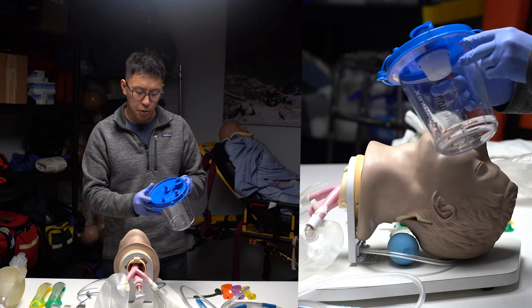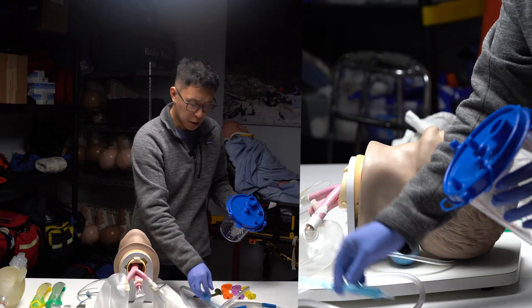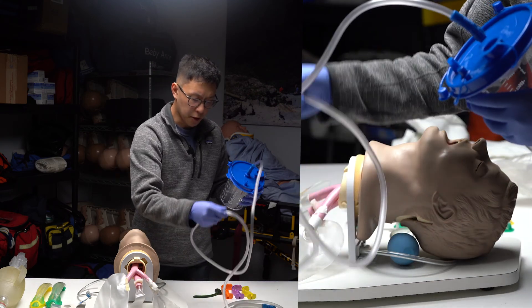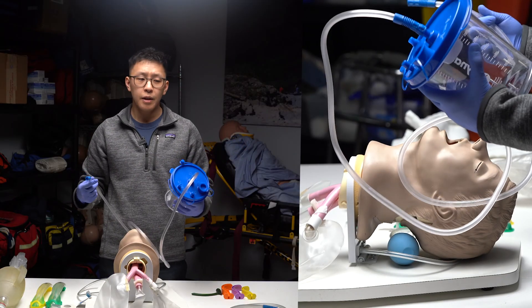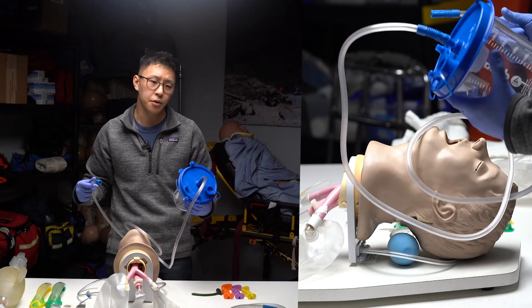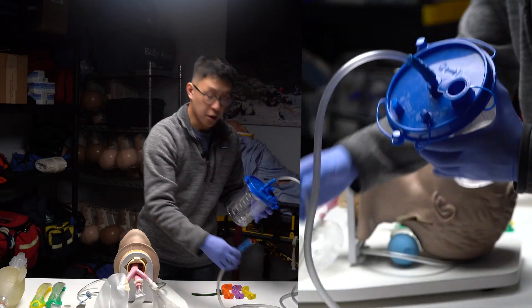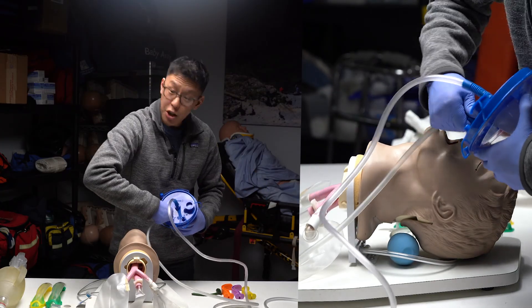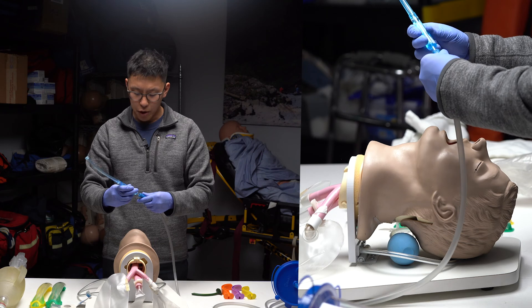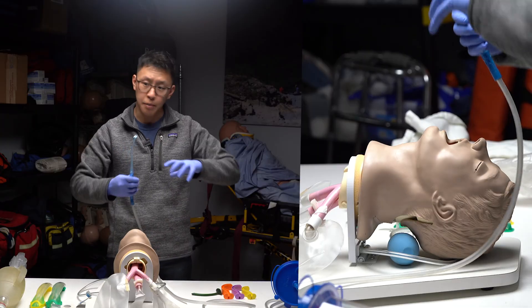We need to see that you know how to assemble suction correctly — ensuring the lid of the canister is on completely and that you're connecting all the suction tubing appropriately. One tube goes to the vacuum port, and the other end goes to our suction device. Remember to verbalize this if there's no actual suction device at the station. There's also a separate set of tubing applied to the patient port, with the other end connected to a yankauer, a rigid suction catheter.